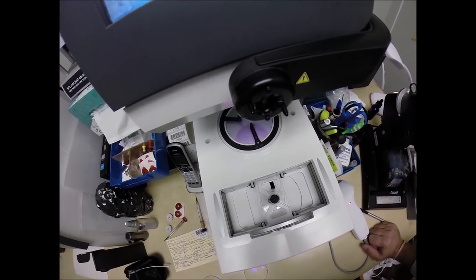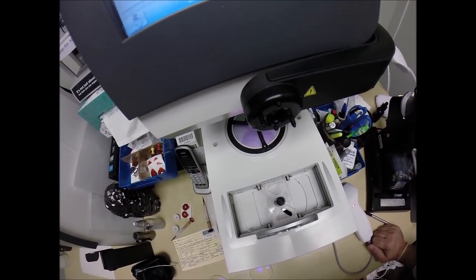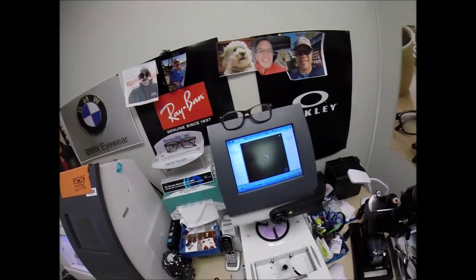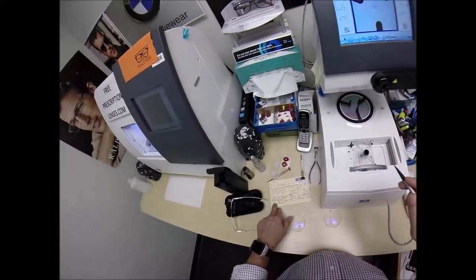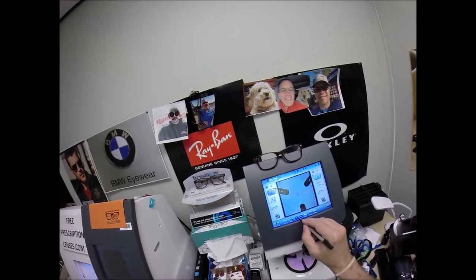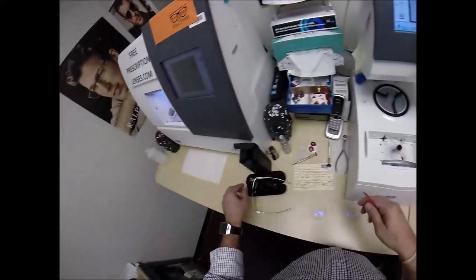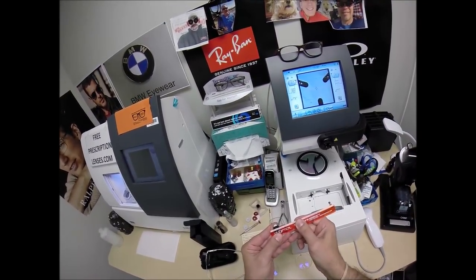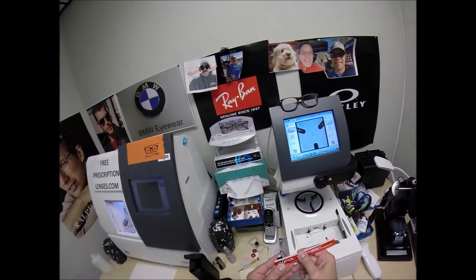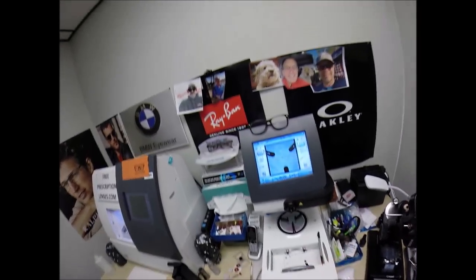My receipt has my federal ID tax number, so if you have vision insurance or unused health savings account flex dollars, you will get reimbursed for this purchase whether they're prescription or not. Your pupillary distance is 30 for the right eye. The B measurement — the vertical depth — I'm getting 33. Half of C is 32 and 13/16. Let's do an OC height of 19.